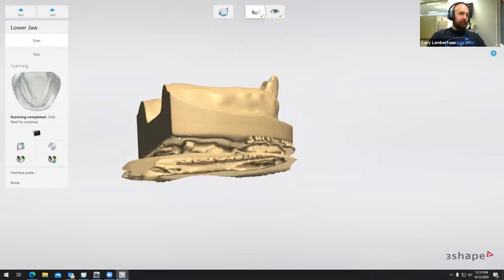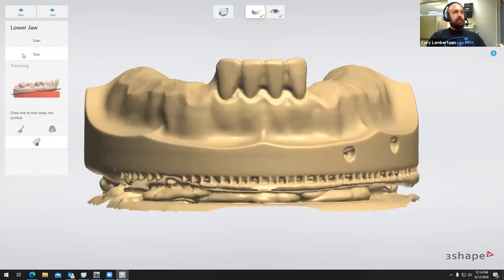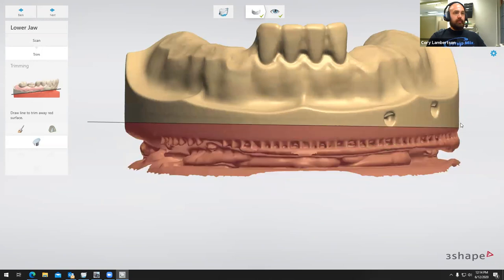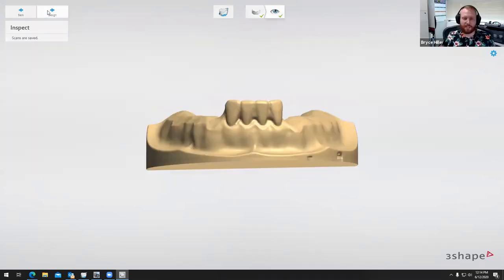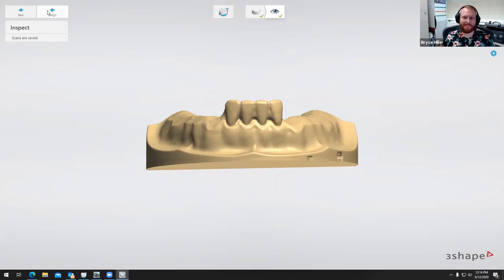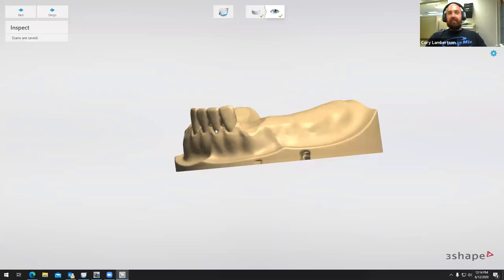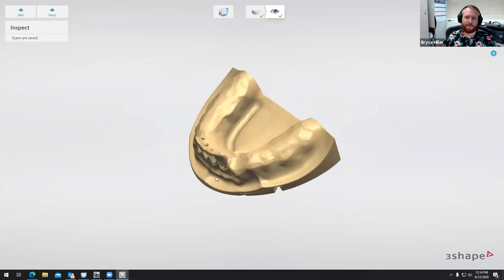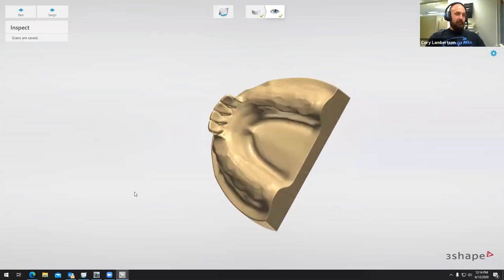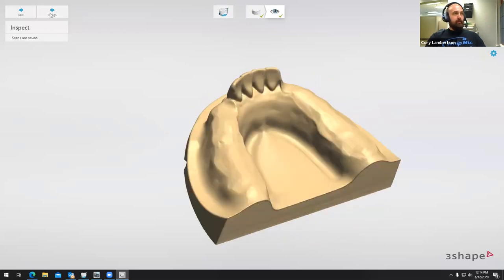So we can see we have a little bit of rough data on the bottom of the scan. I like to go ahead and trim off the base of the actual scan itself. We're going to select trim on the top left-hand side, and I like using the plain cut option — just left-click, hold, and move it across. From here, we'll go ahead and select next. We're at the analyze section. I'm going to inspect my scan, make sure all the data is there — this is exactly what I wanted — so I'm going to go ahead and move on to the design software.